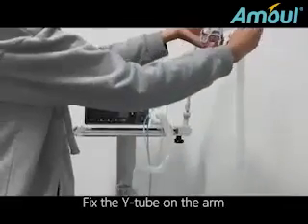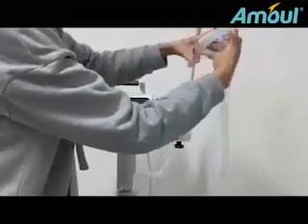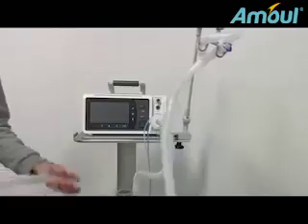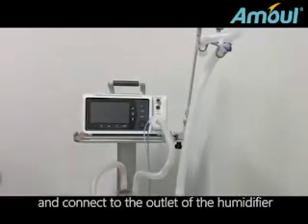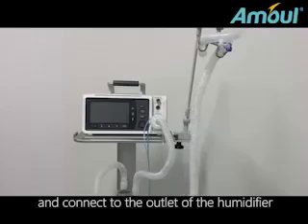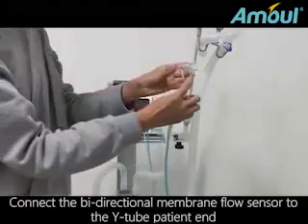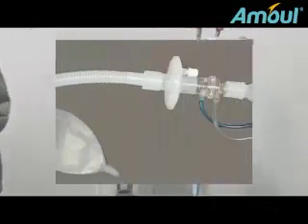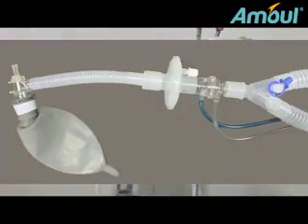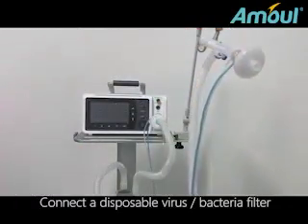Fix the Y tube on the arm. One end is connected to the pipe with the water collecting cup, and connect to the outlet of the humidifier. Connect the bidirectional membrane flow sensor to the Y tube patient end. Note that the blue tube faces the patient end. Connect a disposable virus bacteria filter.